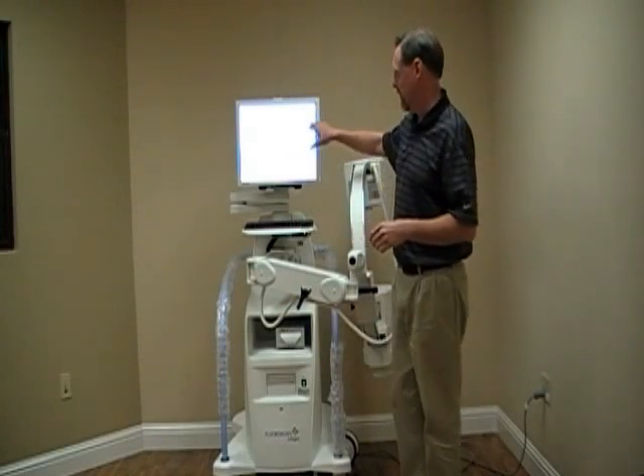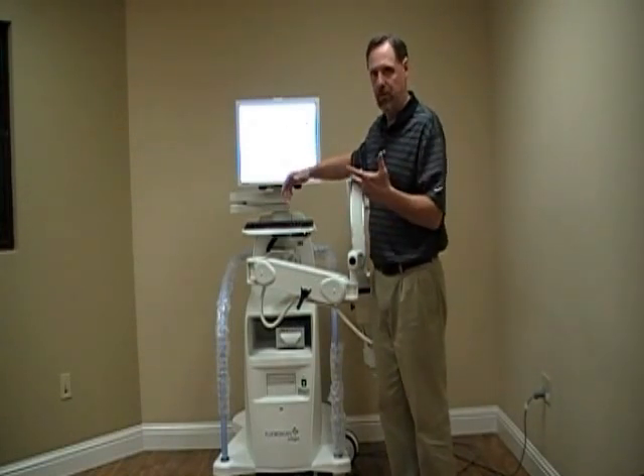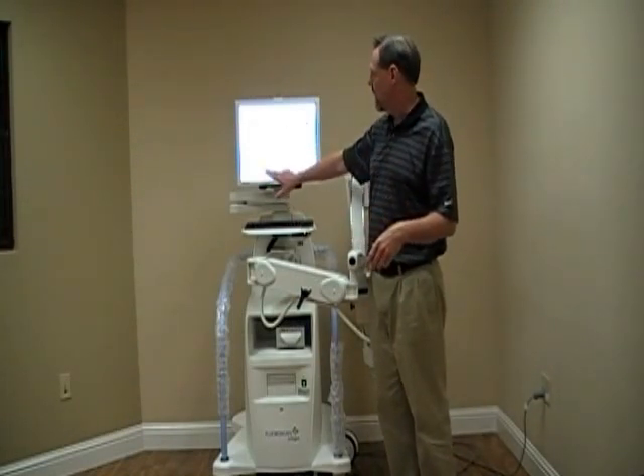Go ahead and put in all the other fields. You've got your physician's last name in those, just so that they're in there and they're transferred if we need to send information. Hit Perform.